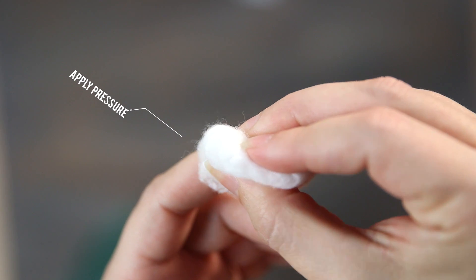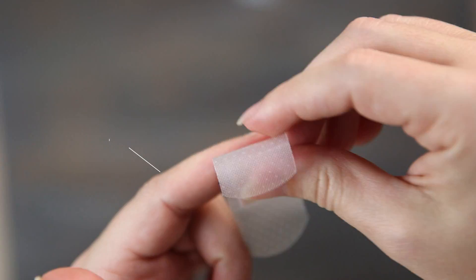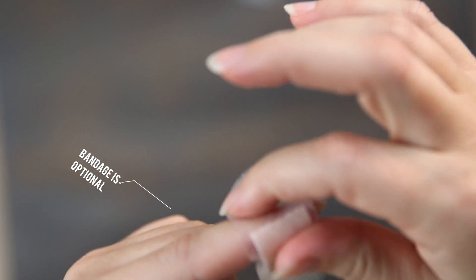Apply a little pressure to get the bleeding to stop. Most people don't need to, but you can use a bandage if you want.